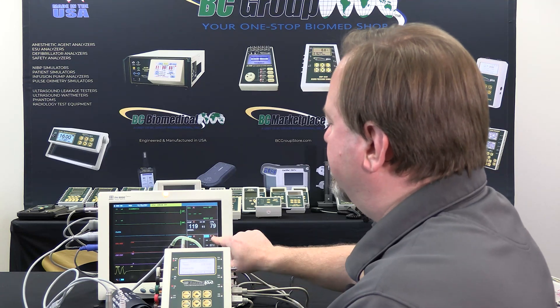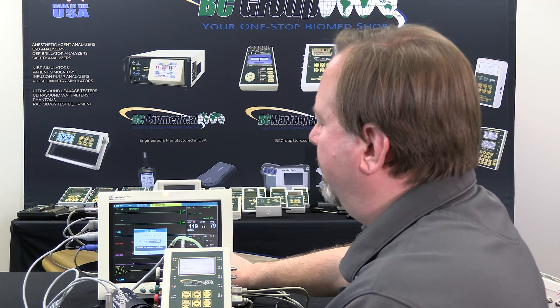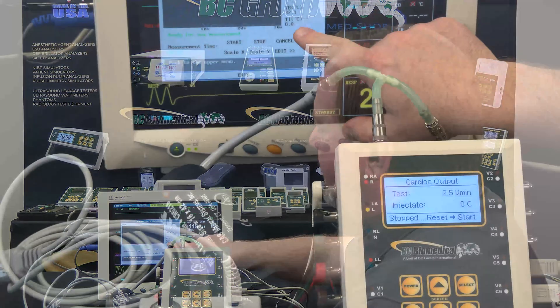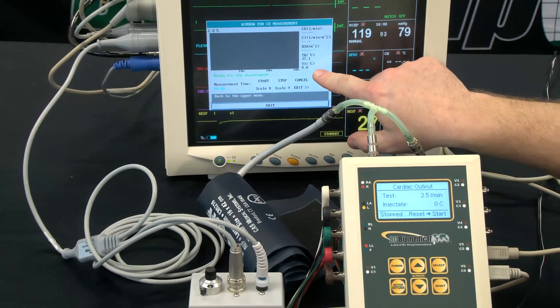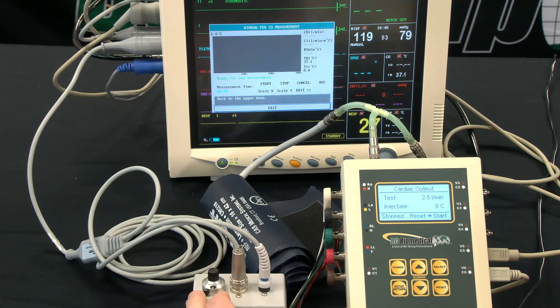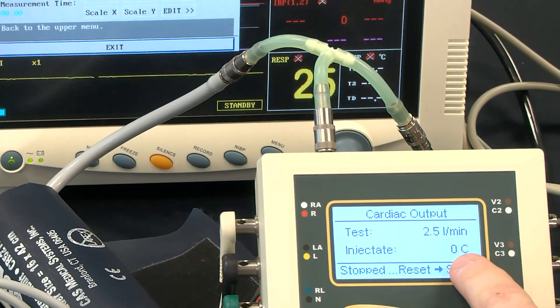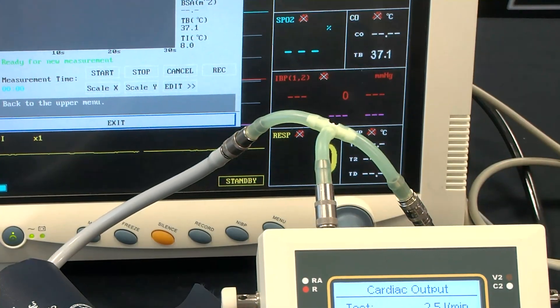We'll go to the cardiac output screen on the monitor — in this case a Mindray PM9000 — and this gives us an indication of the injectate temperature here. It thinks that it's eight degrees; that's what it's measuring off of this probe and this simulation. So we have to make sure that the injectate temperature we have set on the 1040 matches what's measured on the monitor.